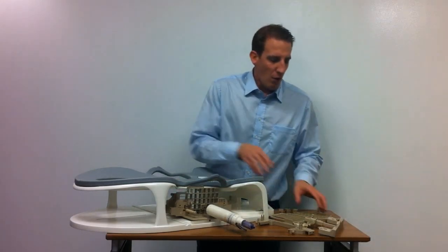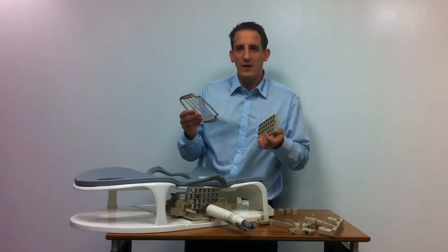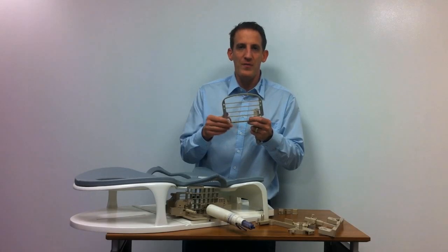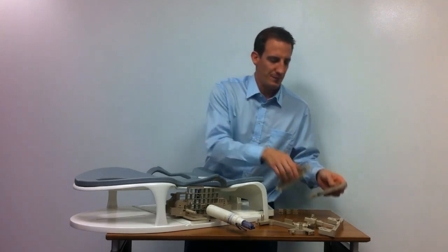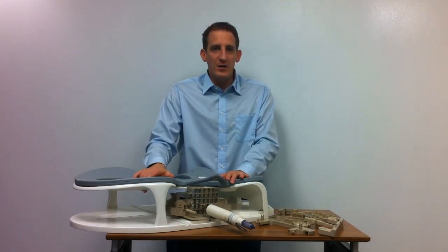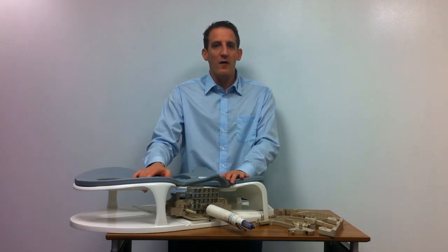After the biopsy, all the grids and pieces used for the biopsy can be autoclaved, because the material is a very durable plastic called PEEK. So all of these pieces are reusable. That was it for today. I thank you for your attention. I hope I was able to teach you something new today, and I look forward to our next podcast.